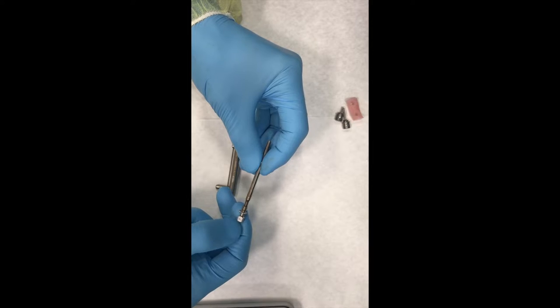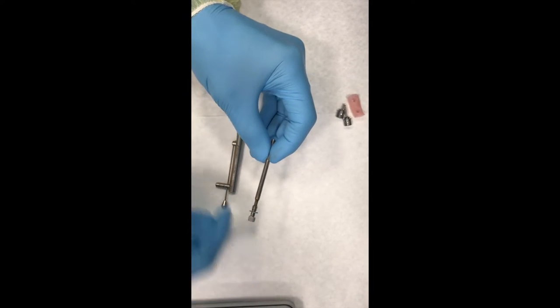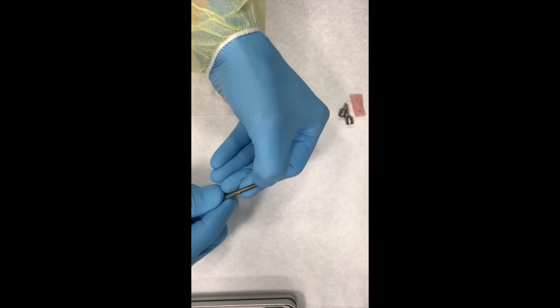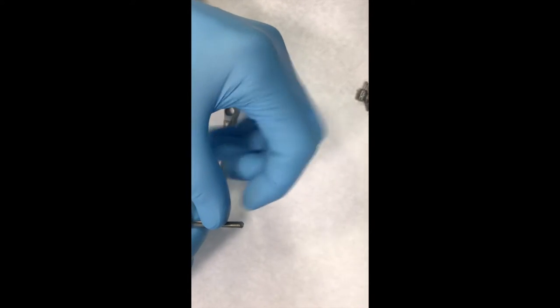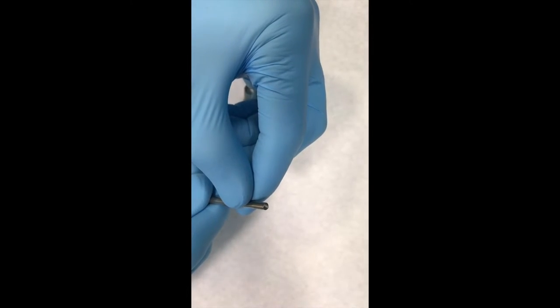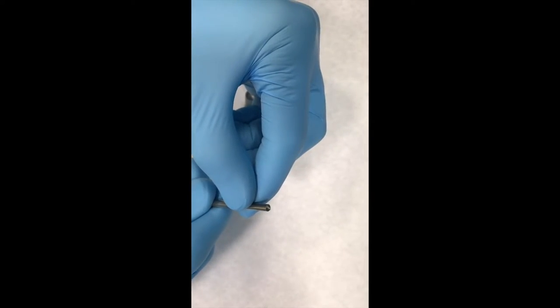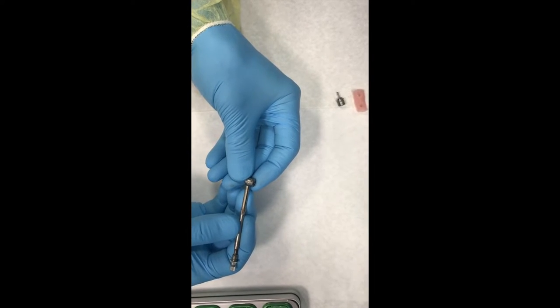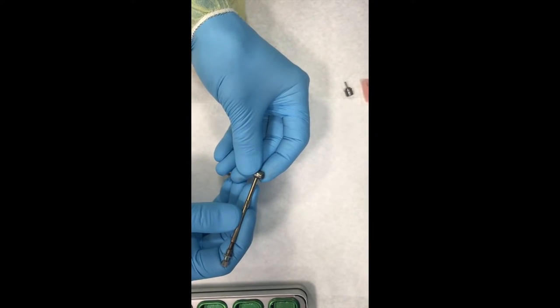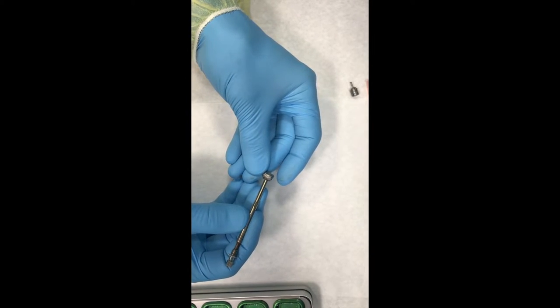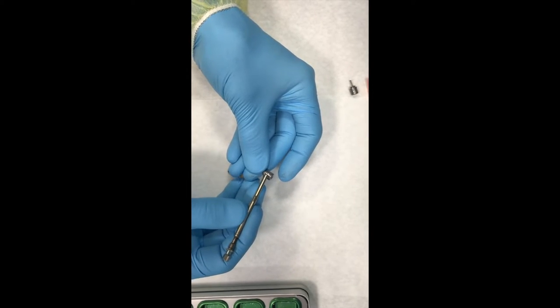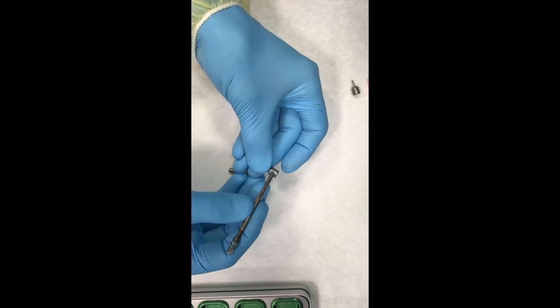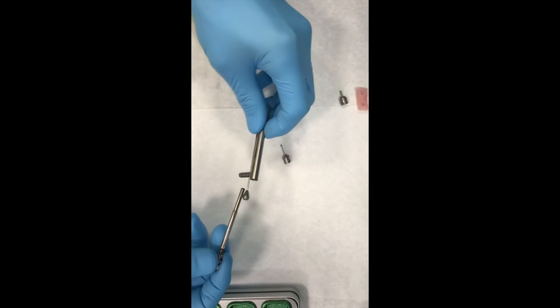All right, so a lot of people think that's for tightening and loosening. No, it depends entirely on how you situate this inside of this little tube here. At the very end, if you look really closely, there's a little sort of wedge shape there. It looks like a little door stopper that's on the very end. And that is the little door stopper, little flat edge area that is going to engage the driver. Notice the driver has got these little slits on the side of it, all these little slit areas. And this driver is going to be engaging in here. So this is the action of the torquing. It's grabbing the driver in that location. So when you hear the click, that's because it's going this way, and then click, click, click, drive. And I think it's pretty important to understand how these things work.